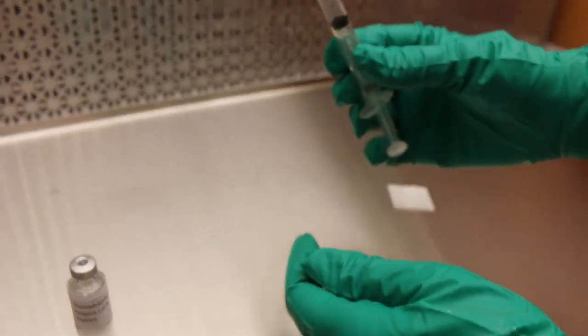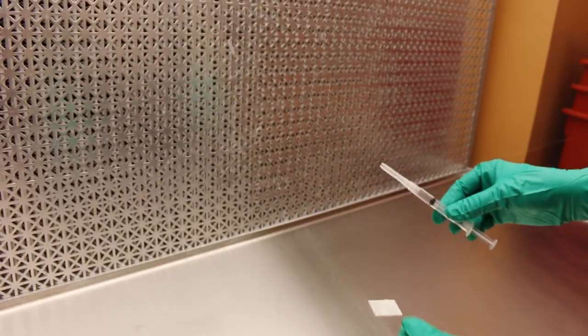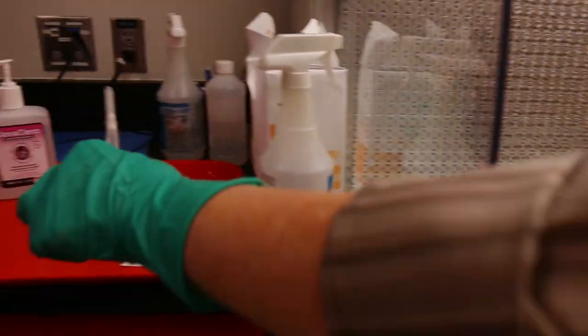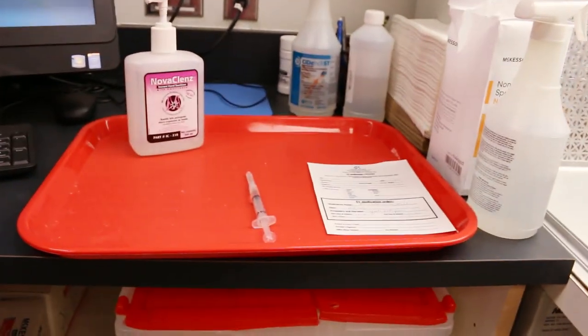Step twenty-four, place the completed product on the transport vehicle. Step twenty-five, request the judge to verify the product.